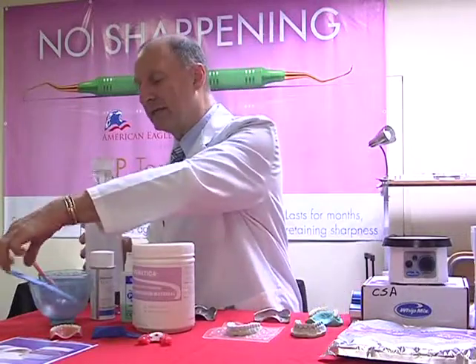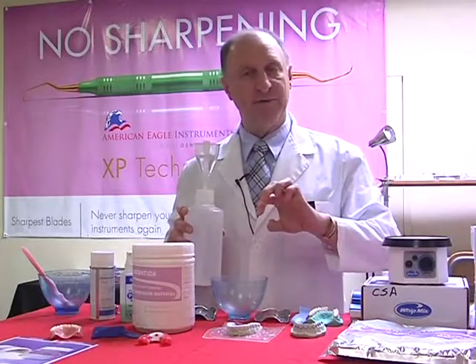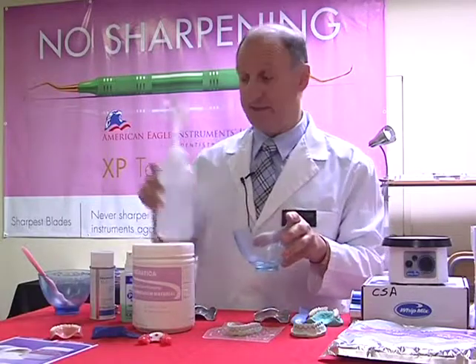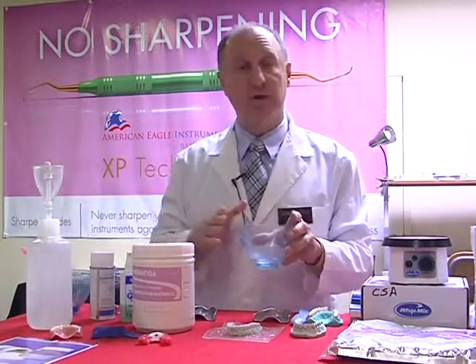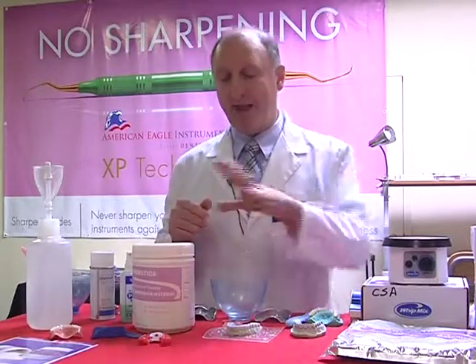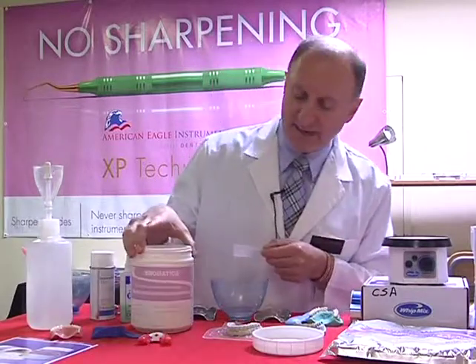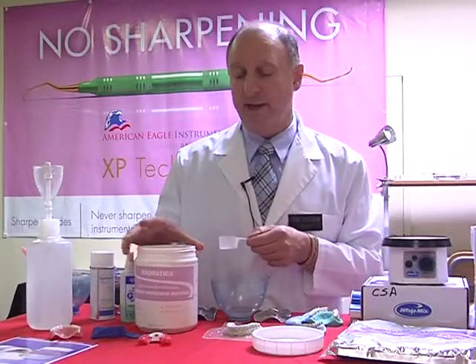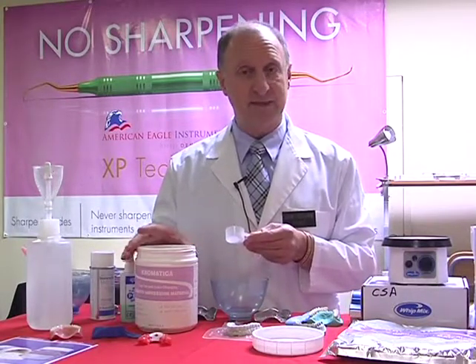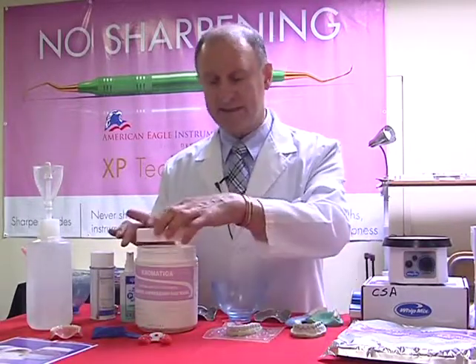So, let's take hold of our bowl that we're going to be mixing. I can put the powder in first, but it's actually preferable to put the water into the bowl first. In this case, I've got room temperature water and the perfect amount from our H2O dispenser. I'm now going to take hold of our alginate, in this case the Kromatica Color-Changing material. This powder is fast set, but it's still going to give me enough working time to handle the material. Prior to doing this, I've put the powder scoop back inside, and I'm closing that for the moment.